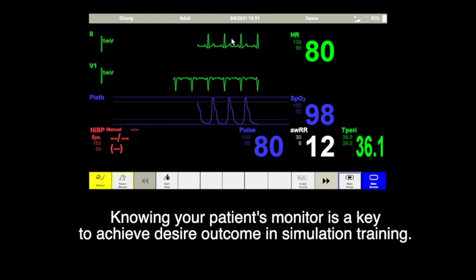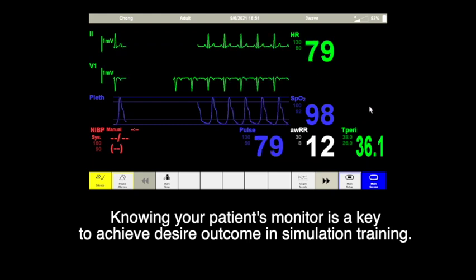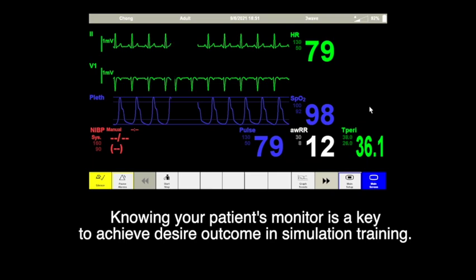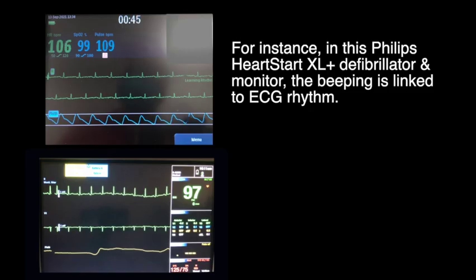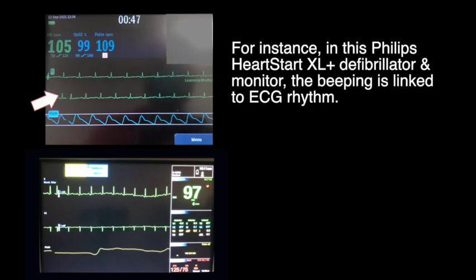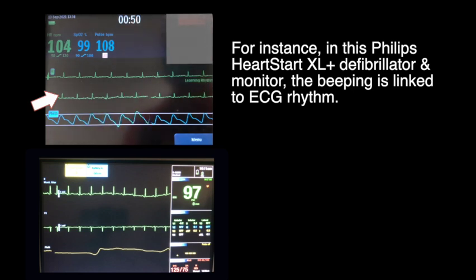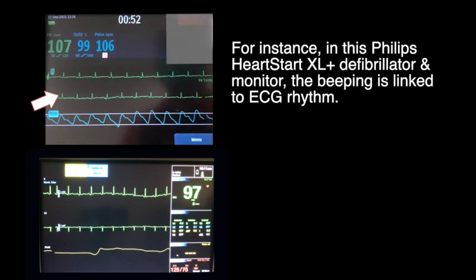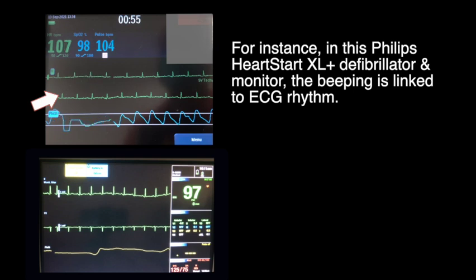Hi, this is Chong. Knowing your patient's monitors is a key to achieve desired outcomes in simulation training. For instance, in this Philips HeartStart XL Plus defibrillator and monitor, the beeping is linked to ECG rhythm.